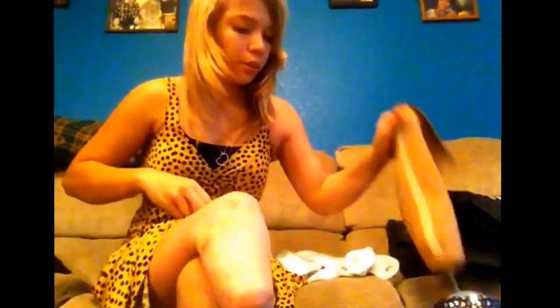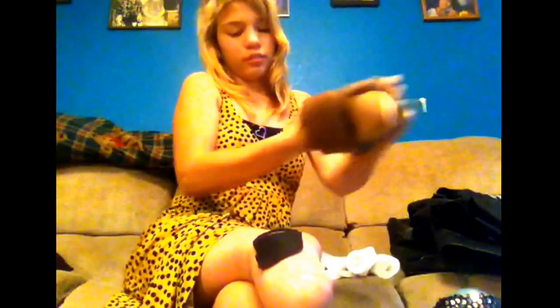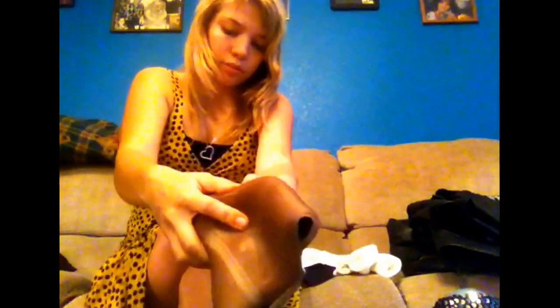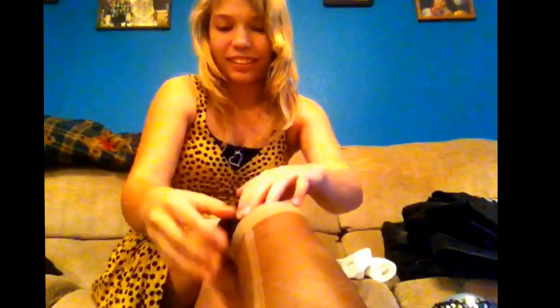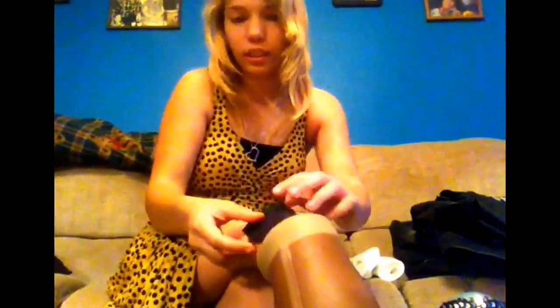All right, I'm gonna place this here. That's my liner — that's what happens when I wear it all day, so no worries. I'm gonna do a video in one or two months as an update with this and how it's looking. Before I go, you can see it's dark.